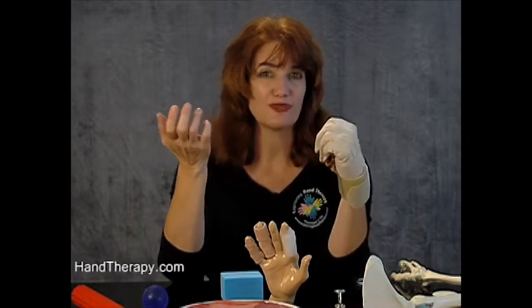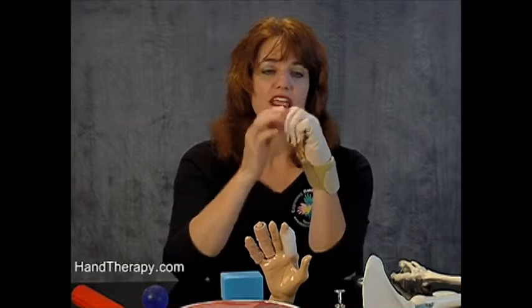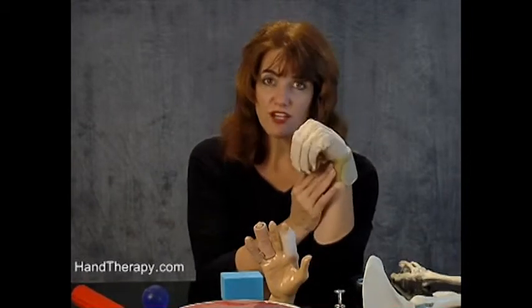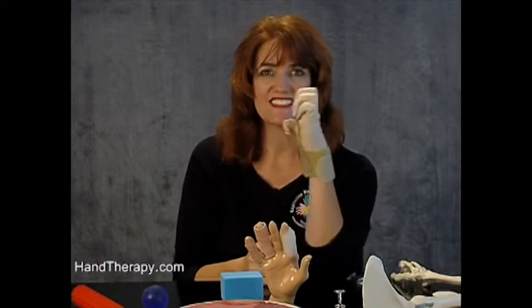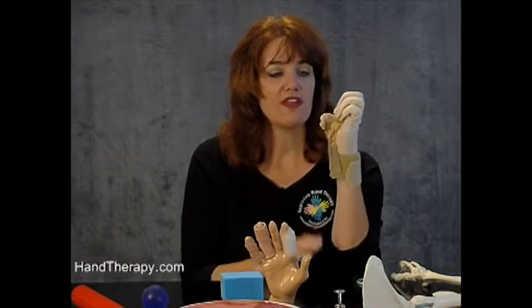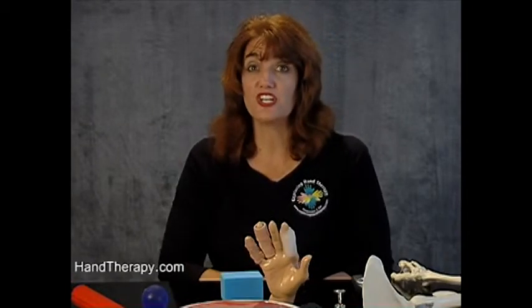There are lots of reasons why we get roadblocks. Having a flexion glove is a very nice way to work on edema. You can modify it by adding a static component to block the wrist from going down, and you can also add a splint to immobilize the MP joints into extension, as discussed with placement of MPs on slide 163. This is another less expensive, less time-consuming option that you may want to use in conjunction with, or to introduce before, getting into your splinting.